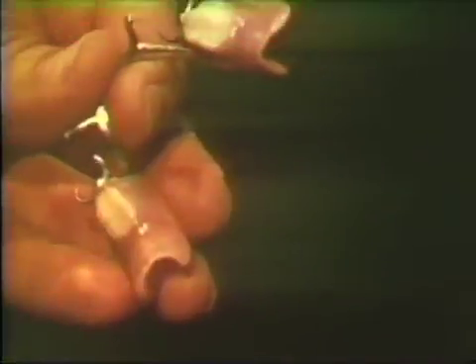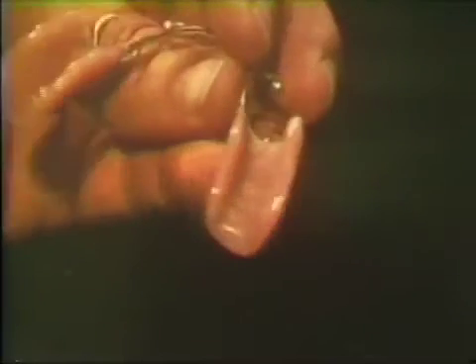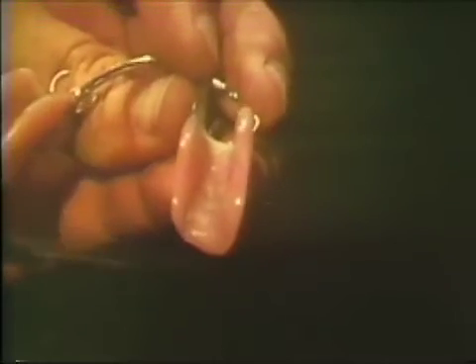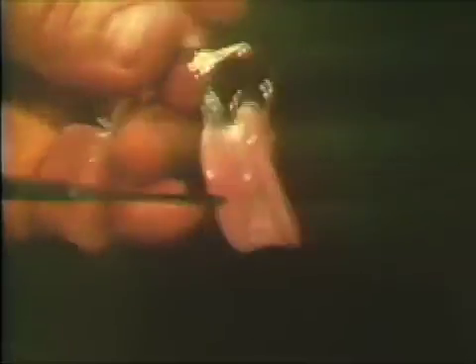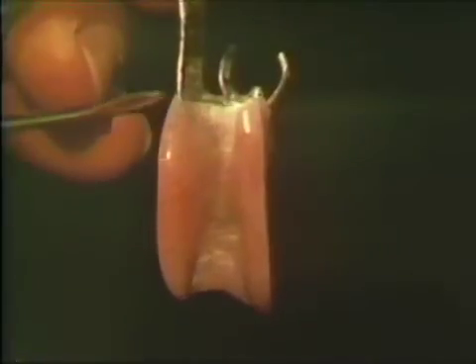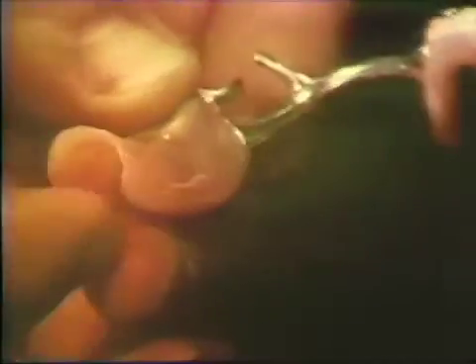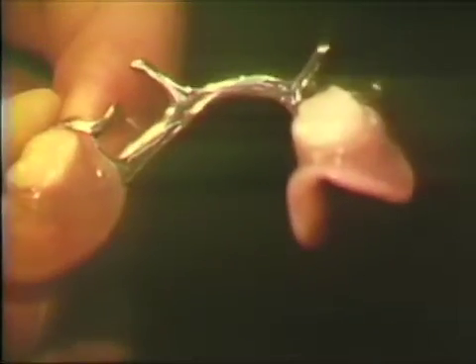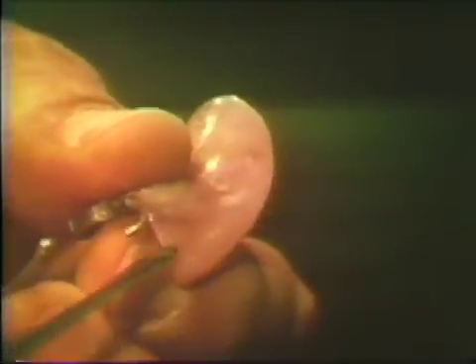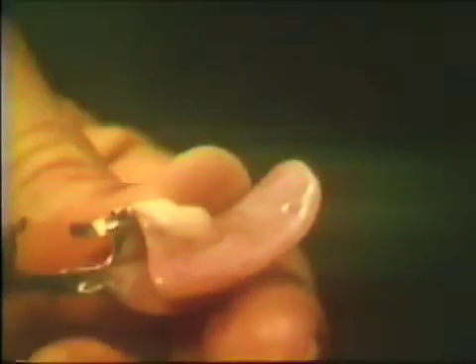Any sharp edges on the base should be trimmed and then polished to a rounded form. The finished base should exhibit a smooth, rounded, polished periphery. The tissue contacting surface should be smooth and properly formed to the resin metal finish line. Any processing defects or nodules are removed. The distal and lingual borders of the base are rounded and polished. The buccal concavity, cervical to the replacement tooth, should extend through the forward section of the base periphery.